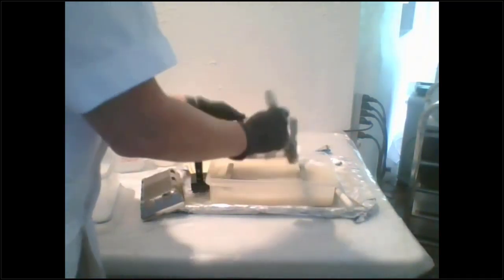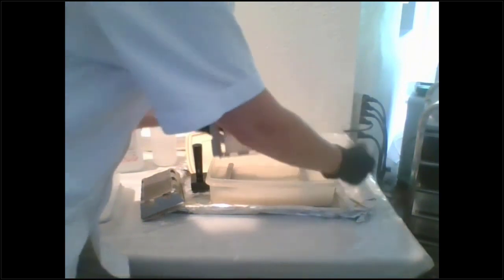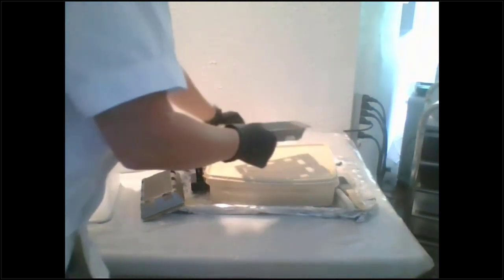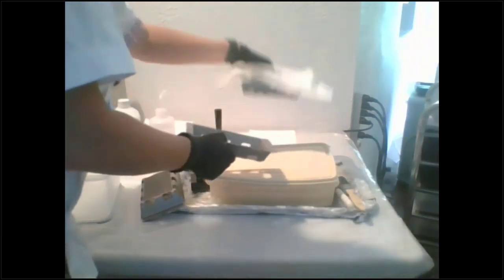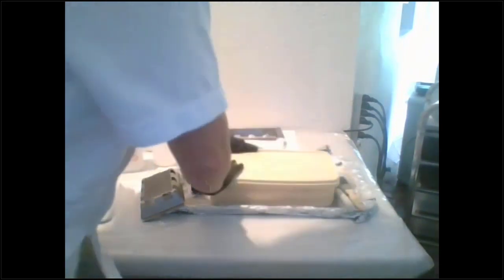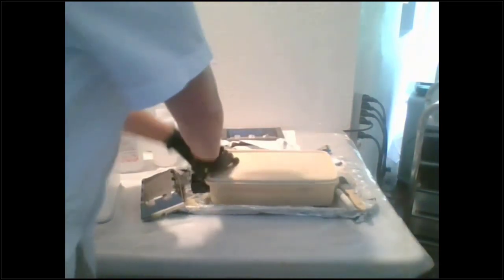But so anyway. So then I just use white balls, and I put them in between my trays, right? So that my trays dry real quick, and they're ready for the next use. Okay, so that doesn't take long, right?